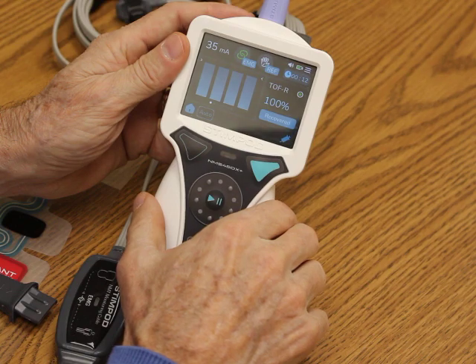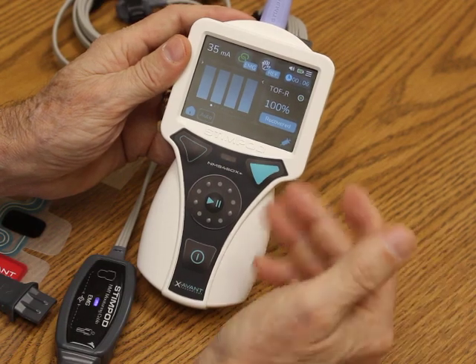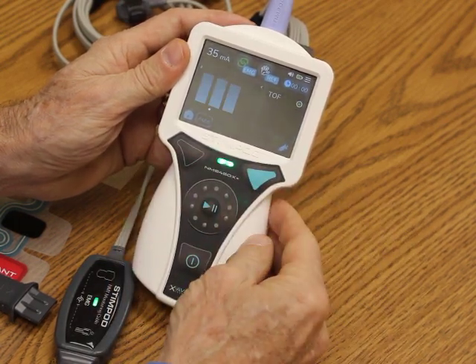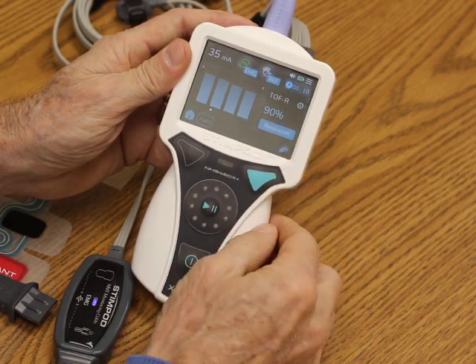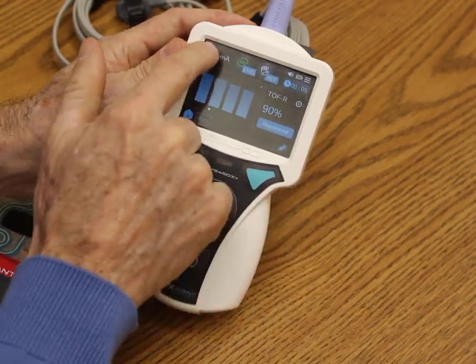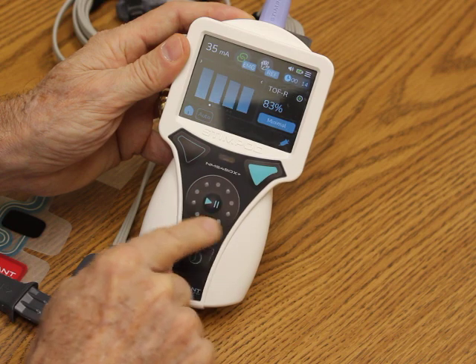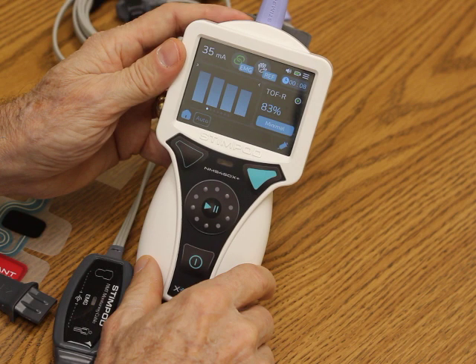It found the ideal current at 35 milliamps and it's showing that the patient has 100%, so they're about to be induced — that's what this simulation is showing. It'll do a train of four every 15 seconds, so you'll actually see the patient as they go down into a paralyzed state. I can adjust the current by simply sliding that bar and pressing confirm, or I can spin the wheel and adjust the current that way. If I don't press confirm, it's going to go back to the milliamps it had selected for that particular patient.